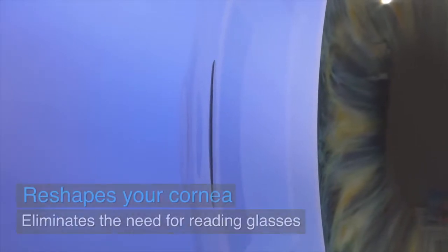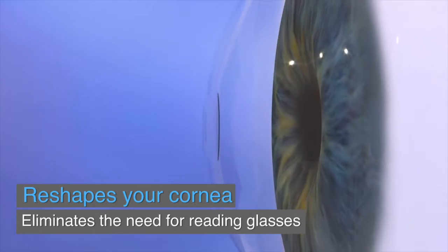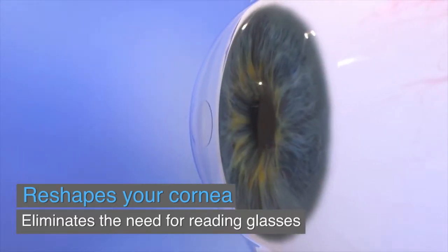The Raindrop Near Vision inlay helps reshape the front of the eye and restores near vision, offering a long-term solution for reading glasses.